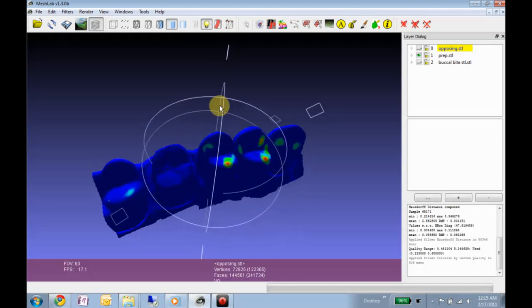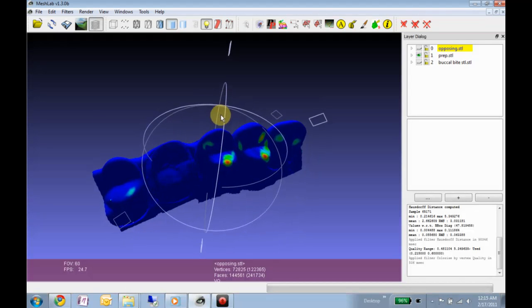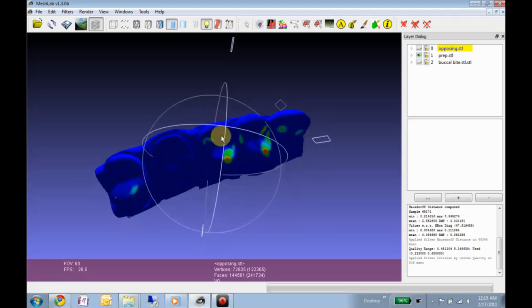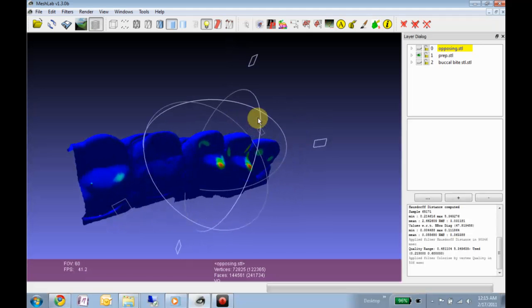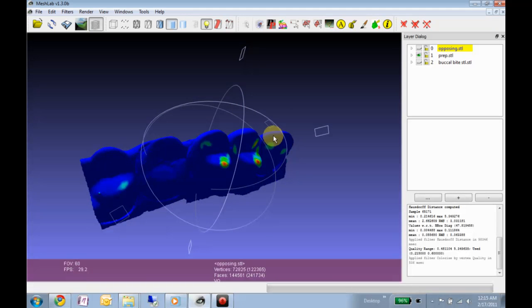So, assuming the meshes were registered decently and stuff, this should work.